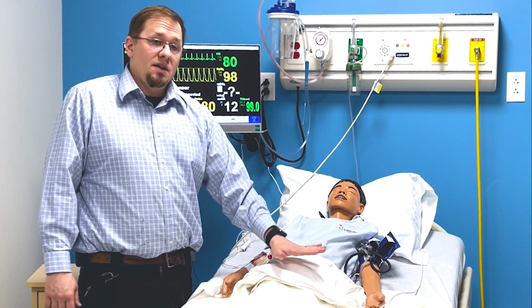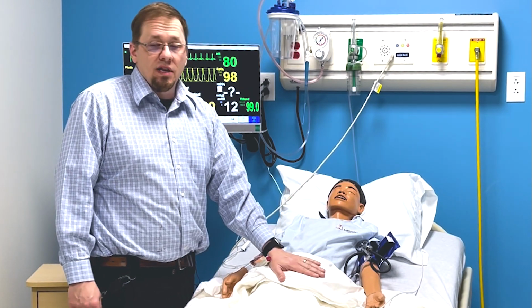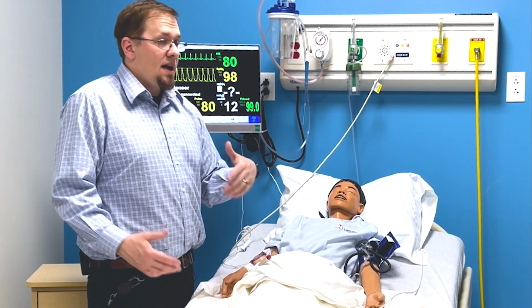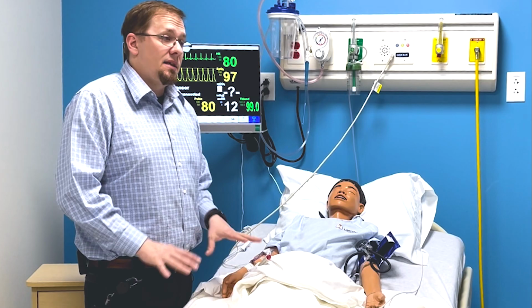Usually going on from here, I talk about if we're going to place a Foley, if I've put urine in the bladder or things like that, or what the response is. But from this point on, I invite everybody over to feel pulse points and to listen to lung sounds. And this is really important. This is their time to figure out where the pulse points are, feel it, and that sort of thing. They're very nervous, and they don't want to feel like they have to ask questions.